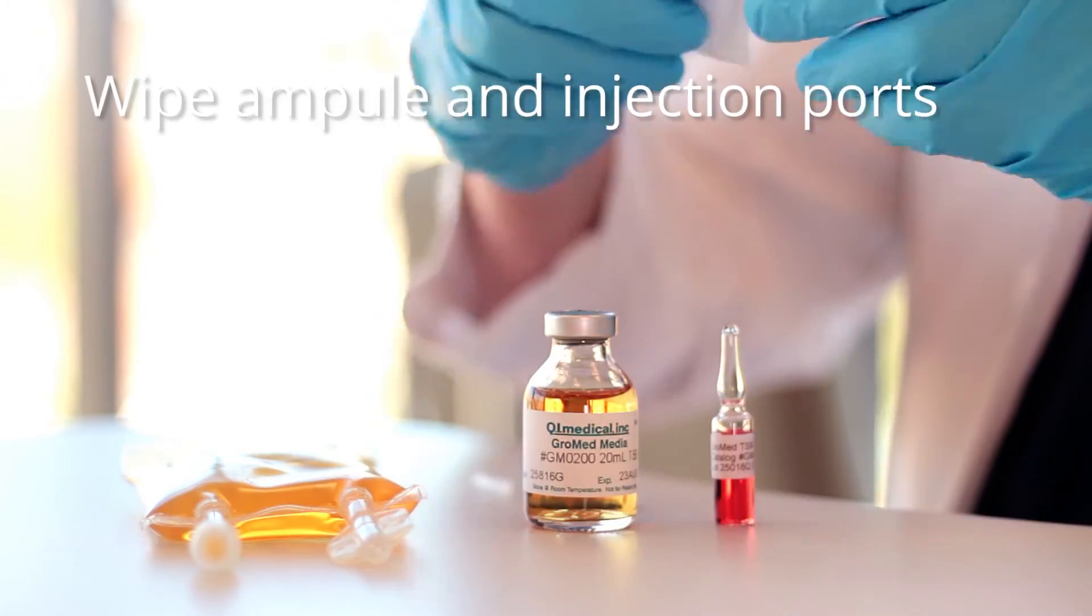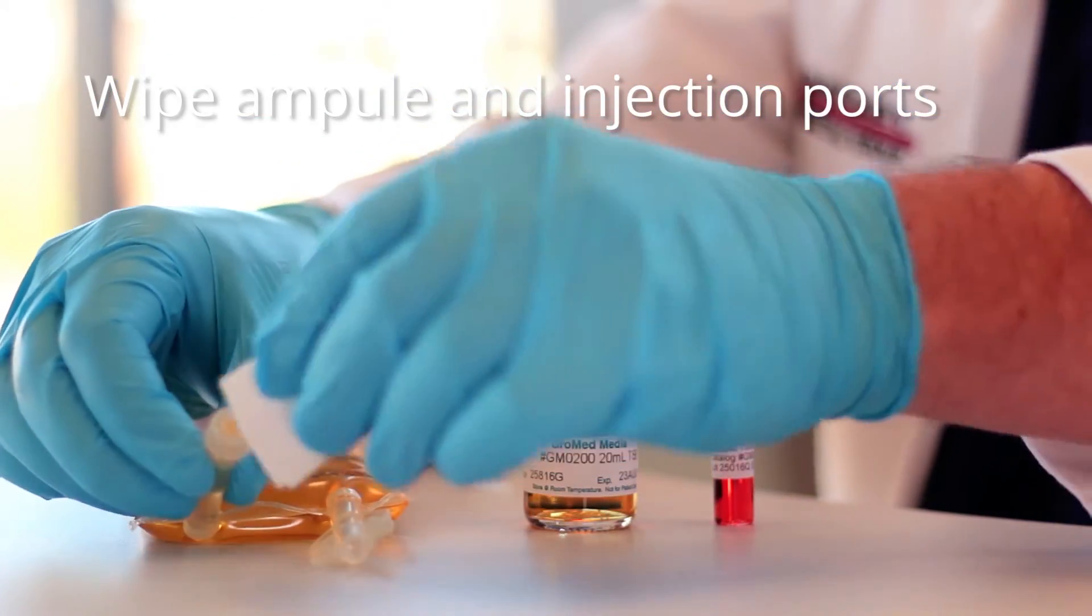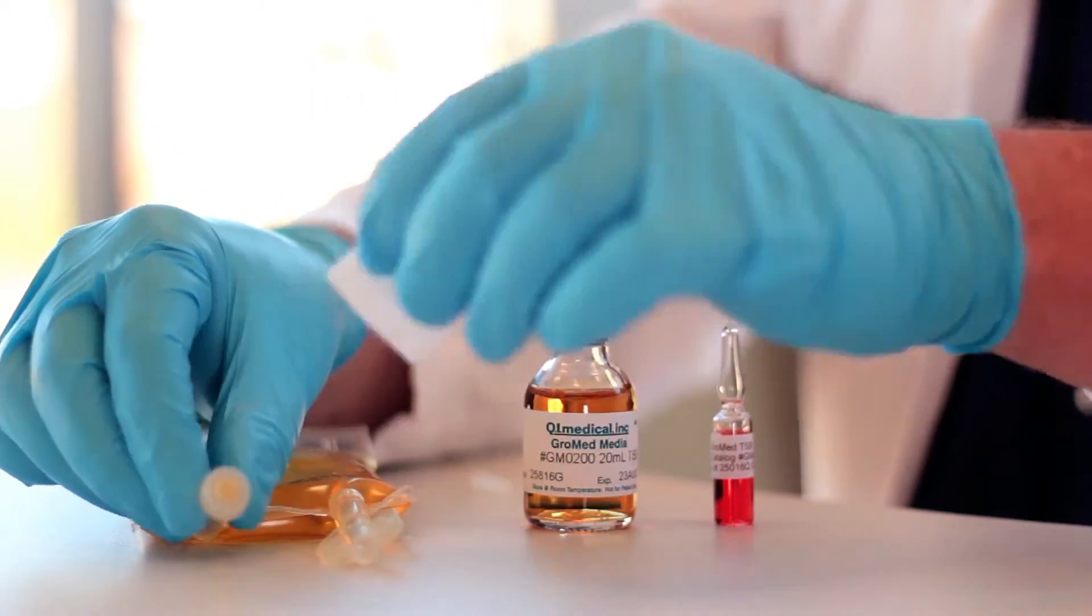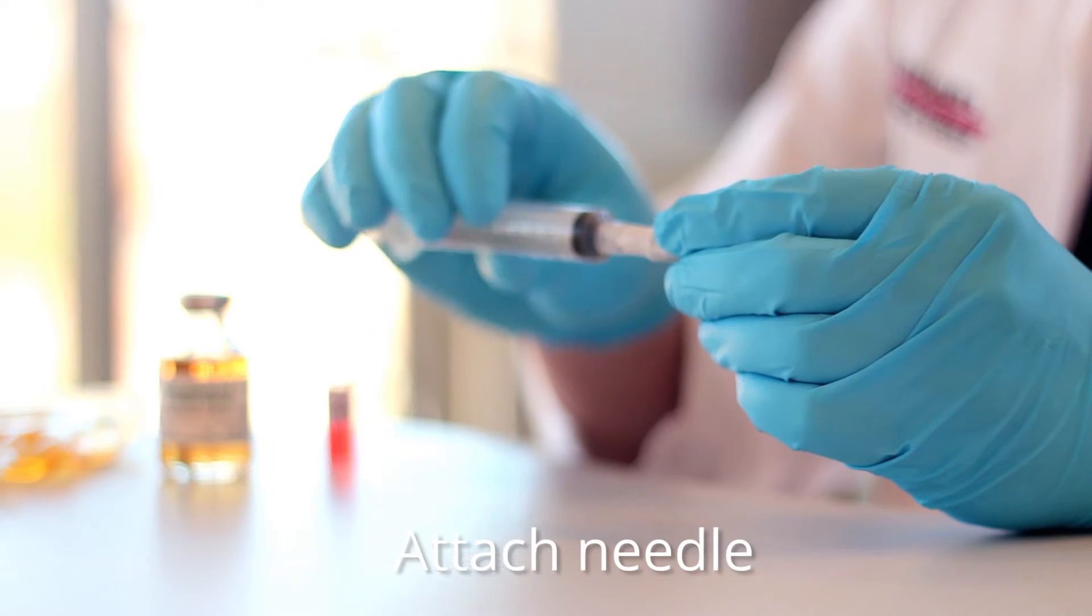Wipe the ampoule and injection ports of the bag and vial with a wipe dampened with IPA. Aseptically attach a needle to the syringe.